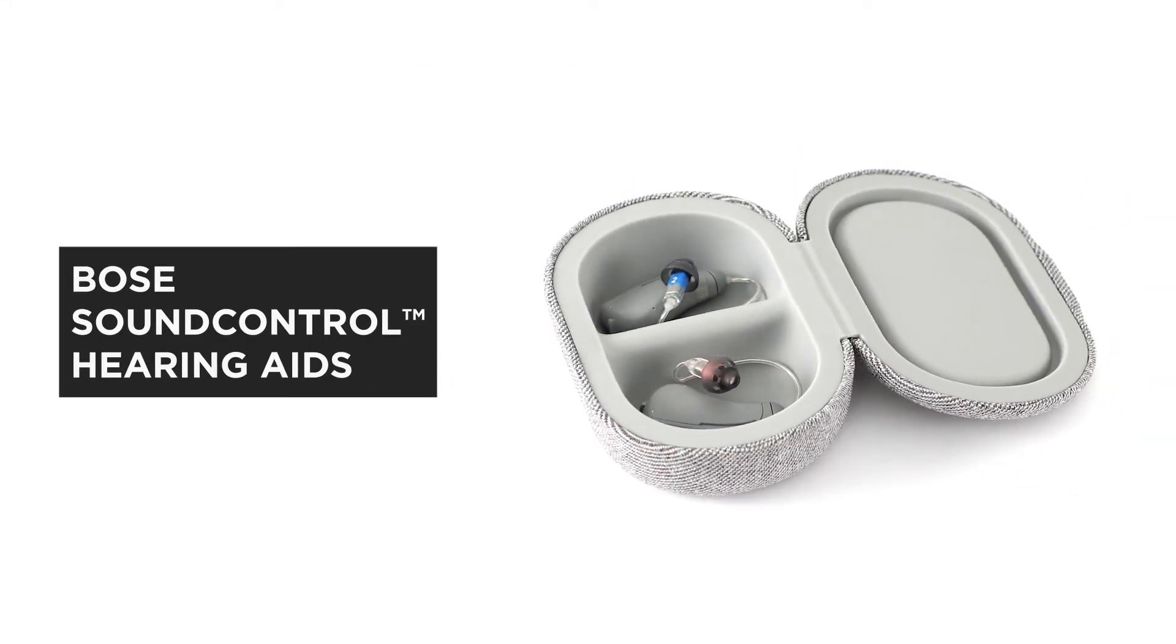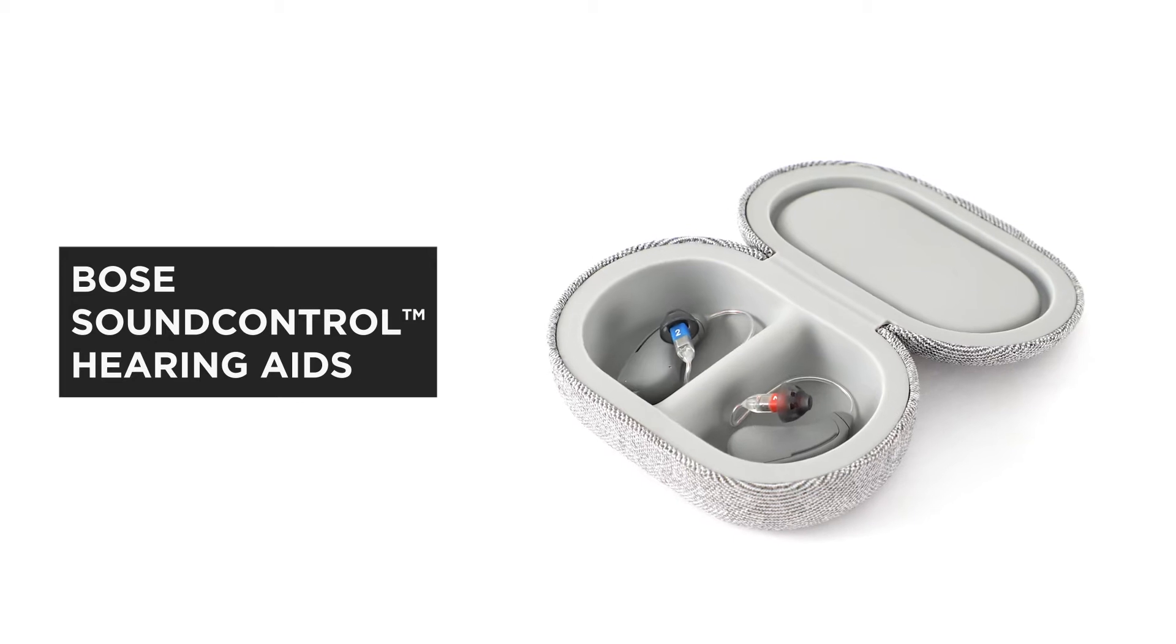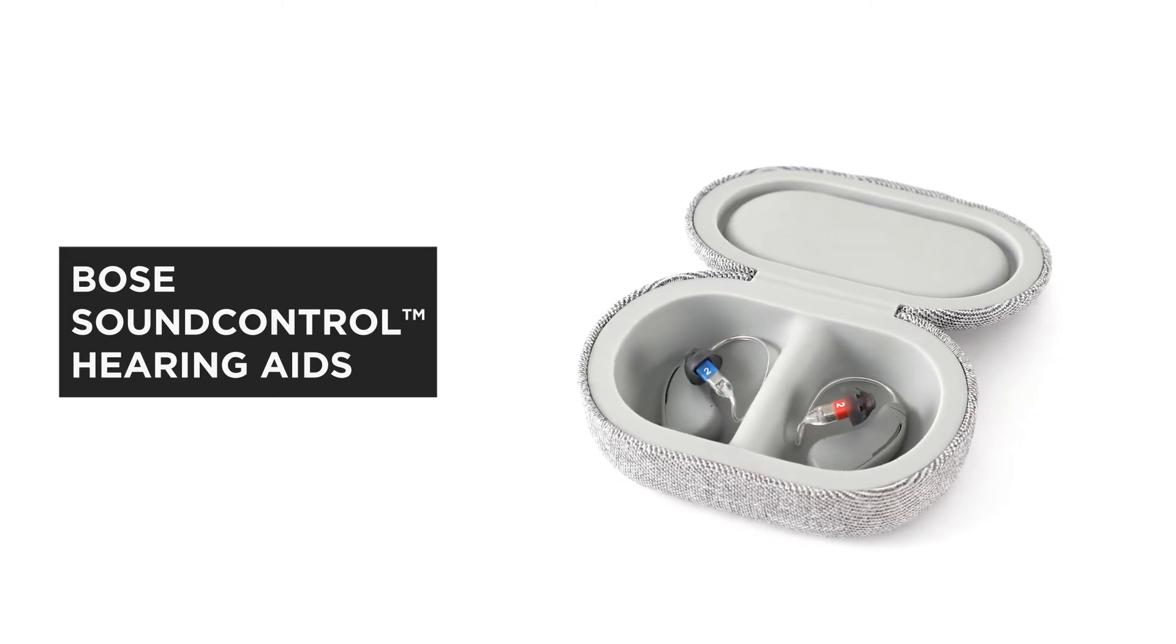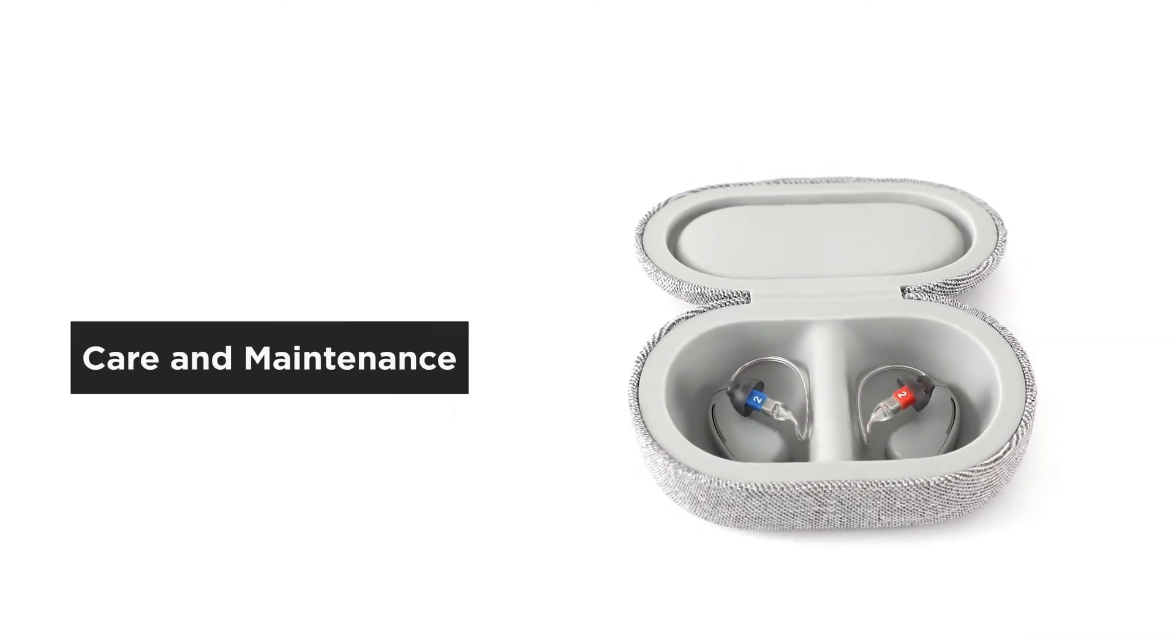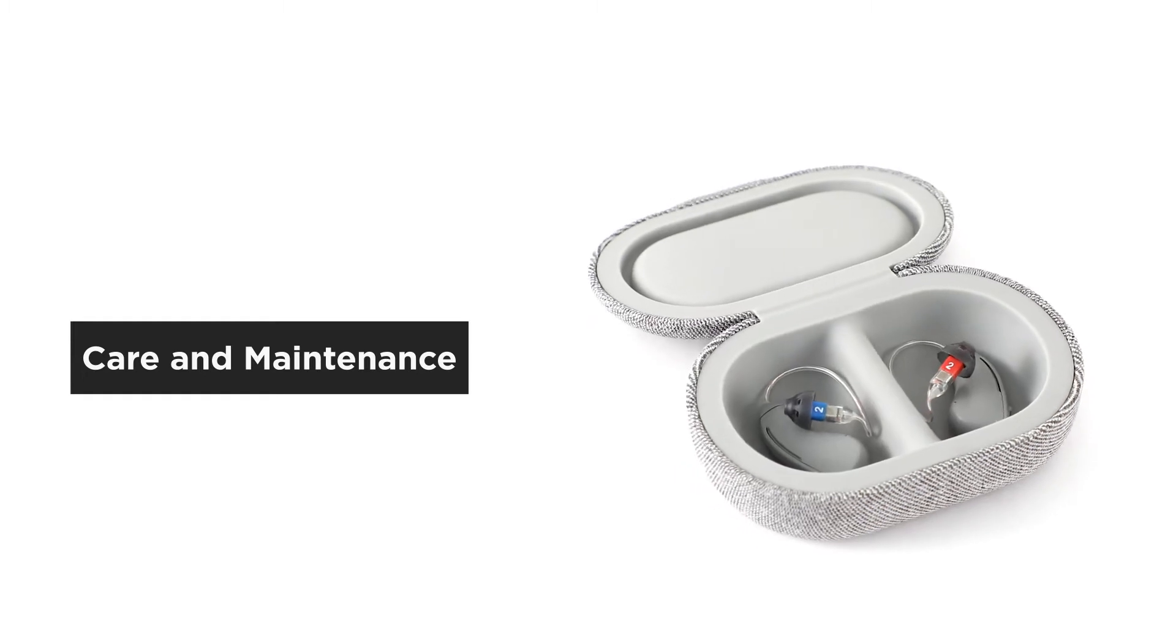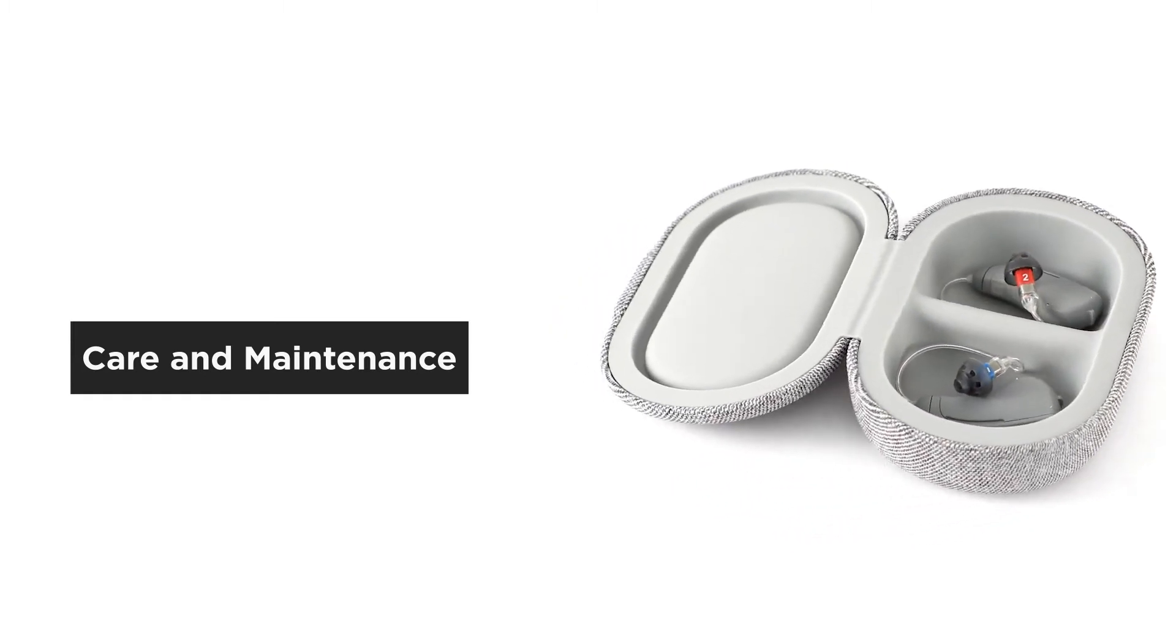It's important to maintain your Bose SoundControl hearing aids to prevent wear and keep them working their best. In this video, we'll share some regular maintenance tips and discuss when to replace accessories.